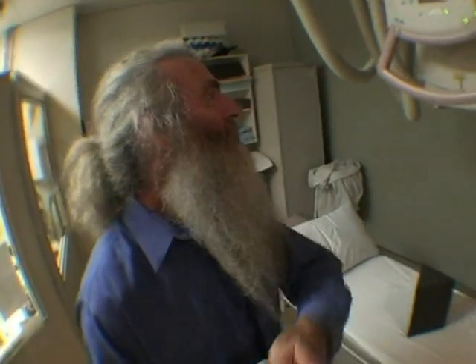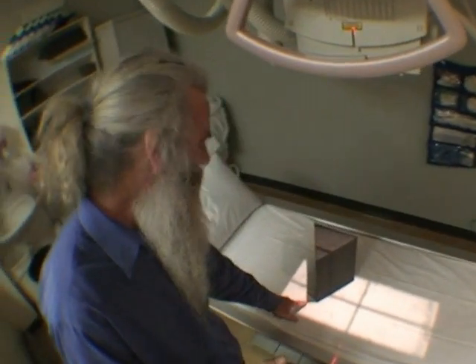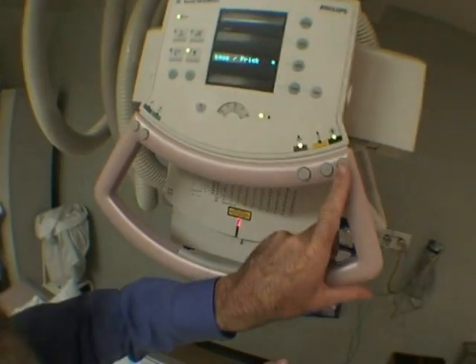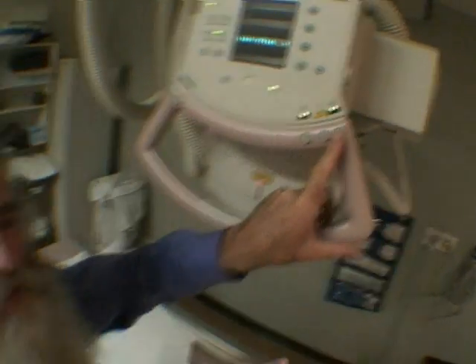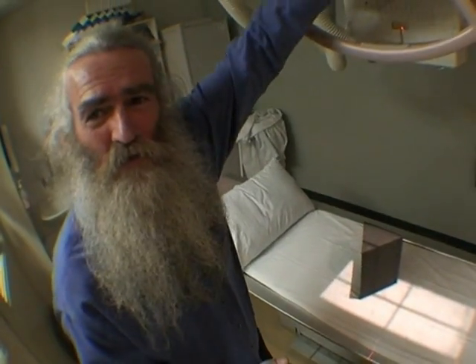I'll give you the test, see how you go. Now if I turn this light on, it shines down here. You can see how it makes a shadow down here. Now if I push this tube angulation button here that just changes the angle of the tube, what will happen to the shadow of that sponge? Think very carefully about it. What is going to happen to the shadow of that sponge?